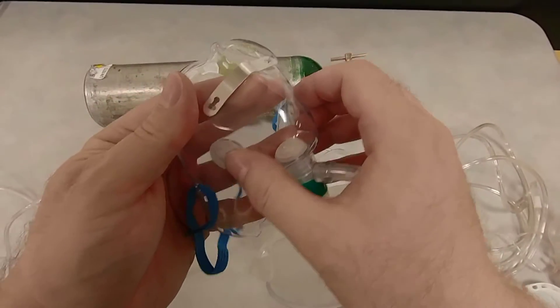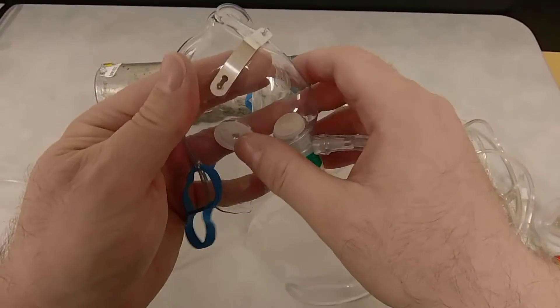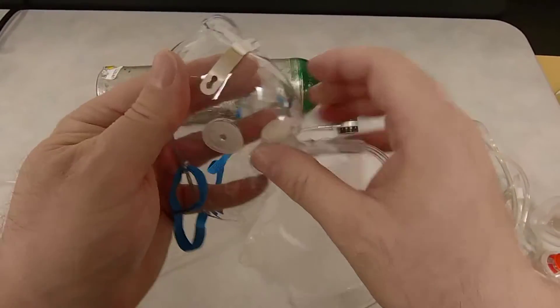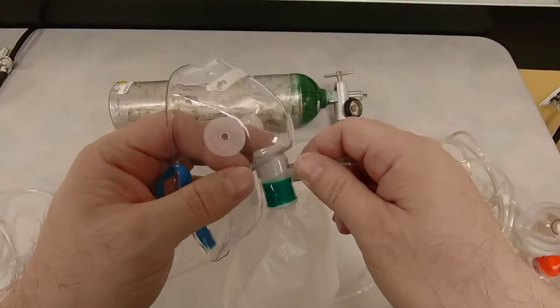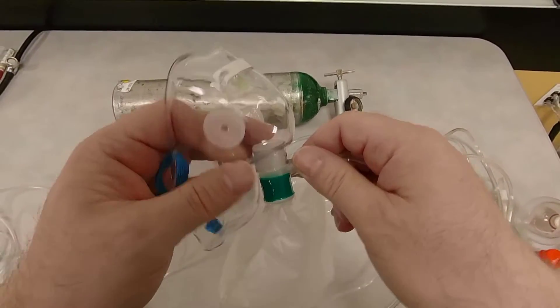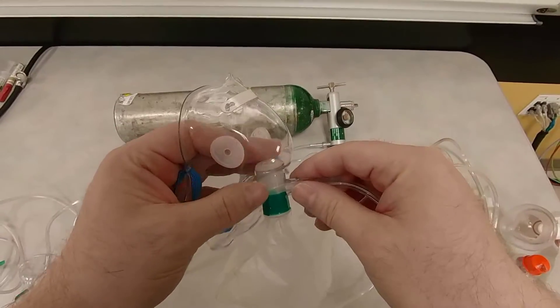So this device is able to deliver about 80% to 90% FiO2. So this is also dependent on patient's minute ventilation. So if the patient is taking adequate rate and depth of oxygen during normal breathing, the patient will get about 90% FiO2 with this device.